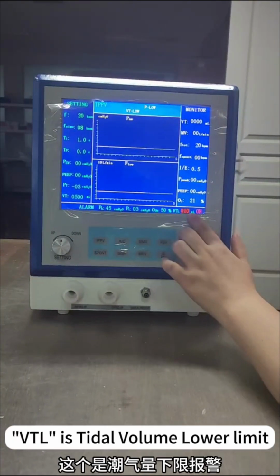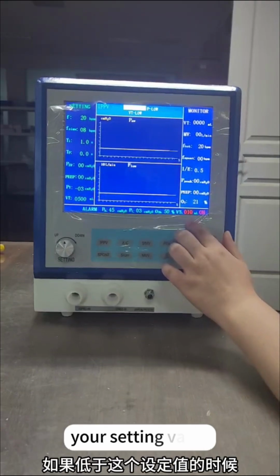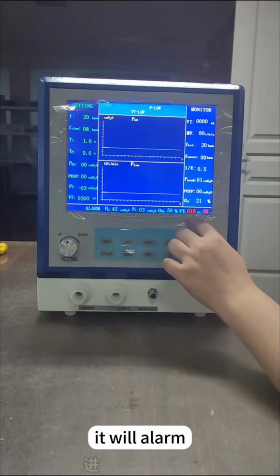VTL is tidal volume lower limit. If tidal volume is lower than your setting value, it will alarm.